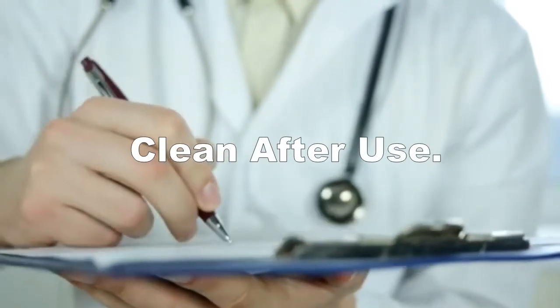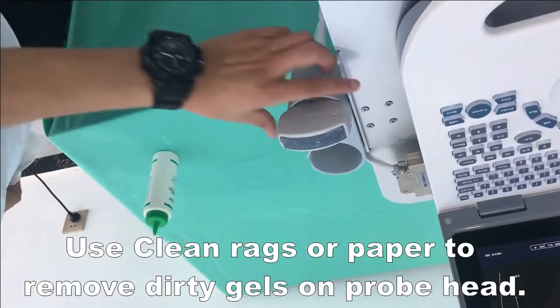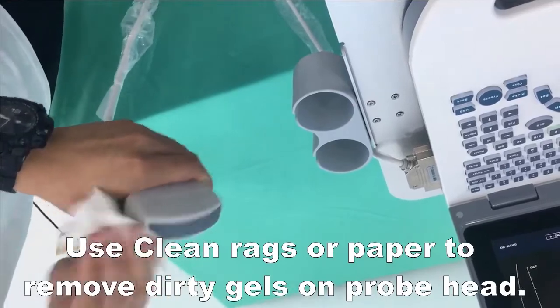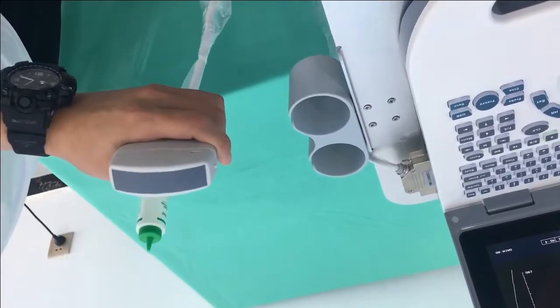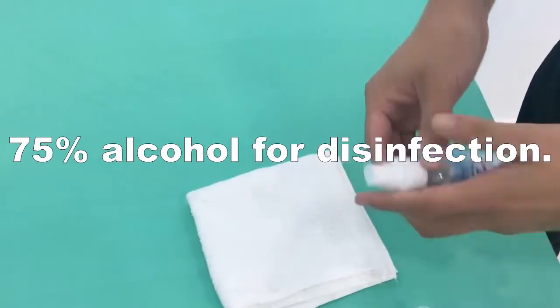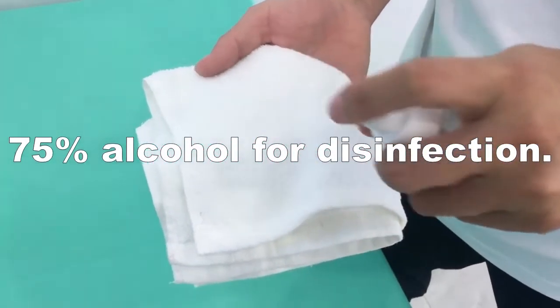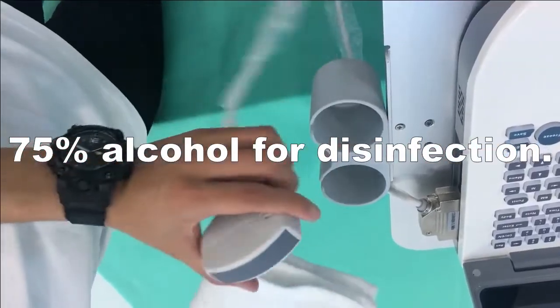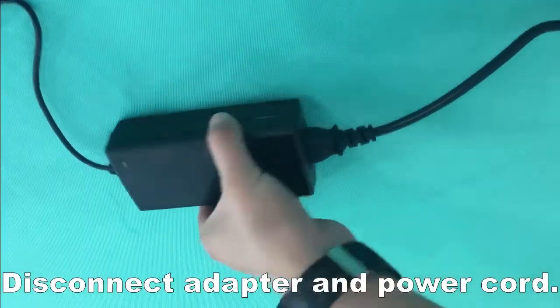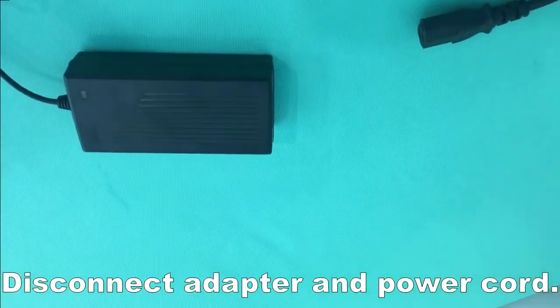Clean the probe after use. Use clean rags or paper to remove dirty gel from the probe head. Use 75% ethanol for disinfection. Do not forget to disconnect the adapter and power cord after use.